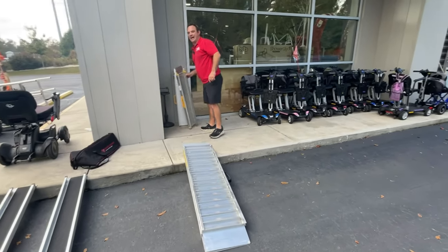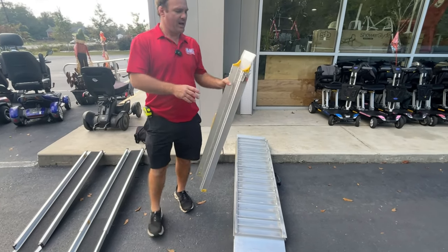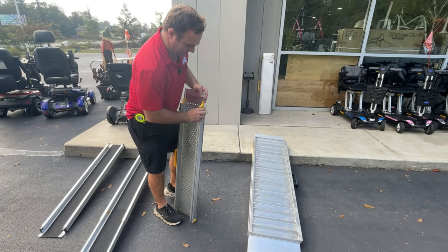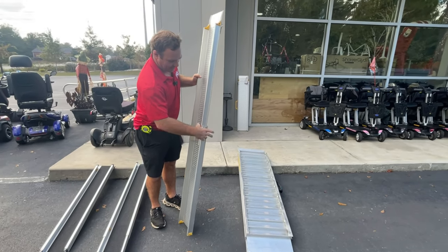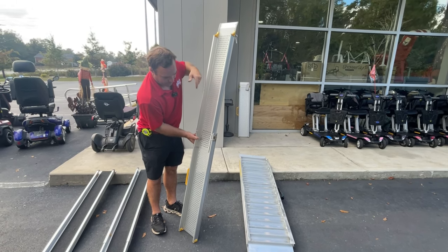Here's a cheaper version. You'll find them cheaper — I think this one is priced around $349 with the bag. These are pretty nice too, but what I don't like about it is this mechanism right here. It's kind of a pain to do sometimes, and it's not as long. And then you've got to clamp all this stuff back. So if that isn't a big deal to you, you can go with it.